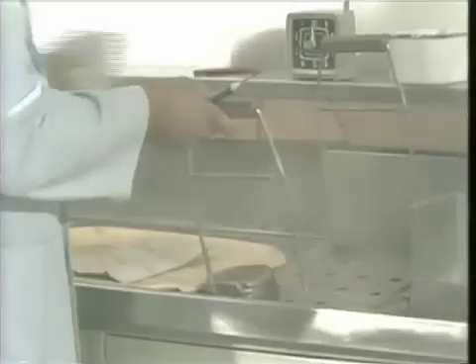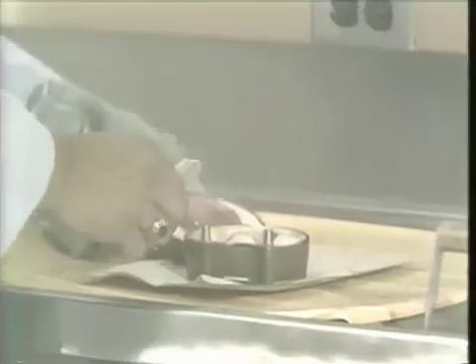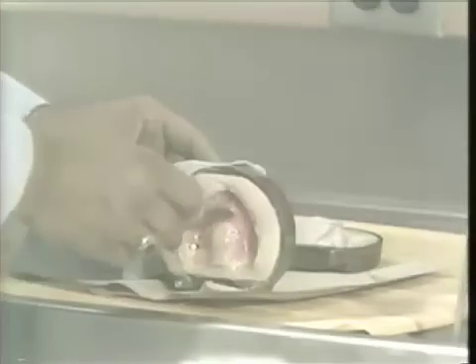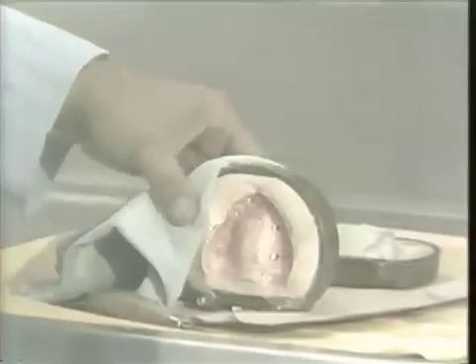After seven minutes in the boil-out tank, remove the flask. At this point, we can open the flask and let the wax and the base plate run out. As you can see, the base plate is removed very easily and discarded. Most of the wax will run out of the mold once it's removed from the boiling water. We still have to flush the residual wax from the mold.